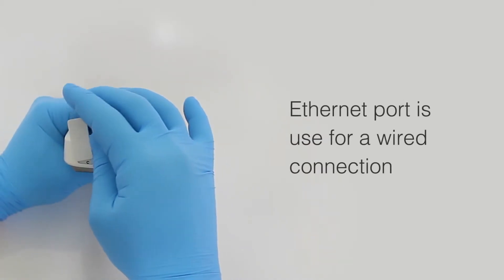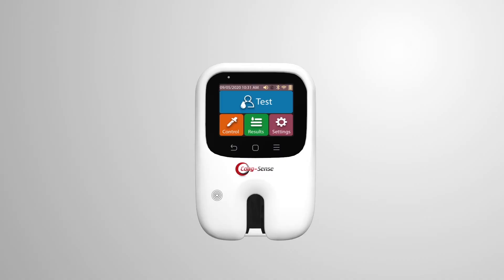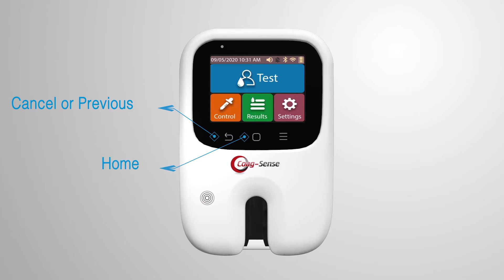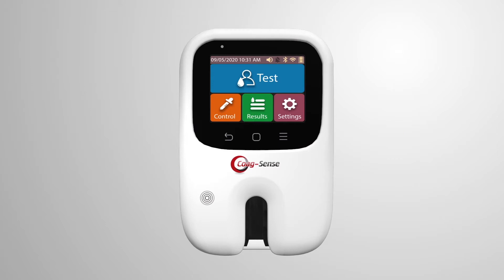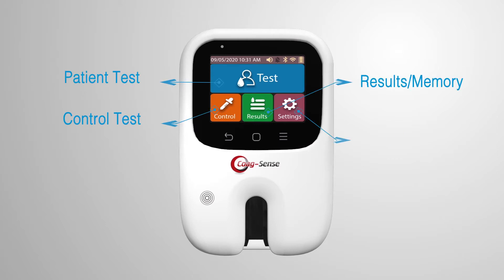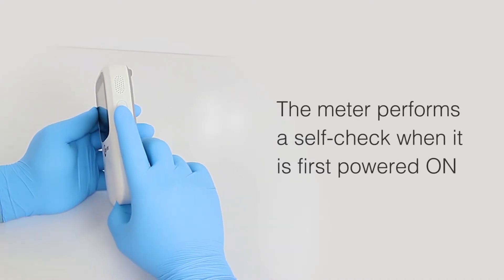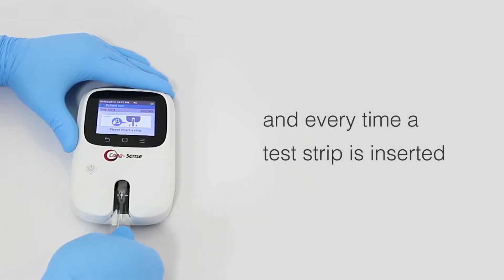The Ethernet port is used to connect the Ethernet cable for a wired connection. There are three touch buttons: cancel or previous screen, home screen, and view menu. The color LCD touch screen shows icons for patient test, control test, results or memory, and settings. The meter performs a self-check when it is first powered on and every time a test strip is inserted.